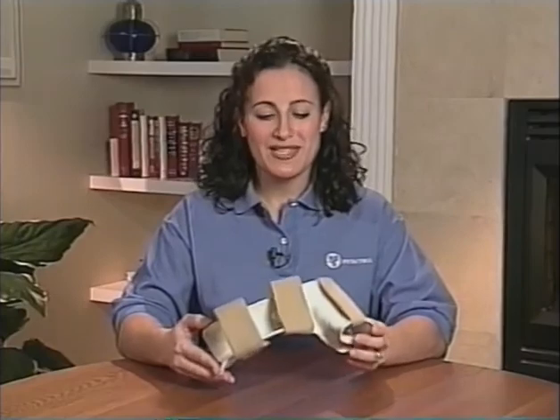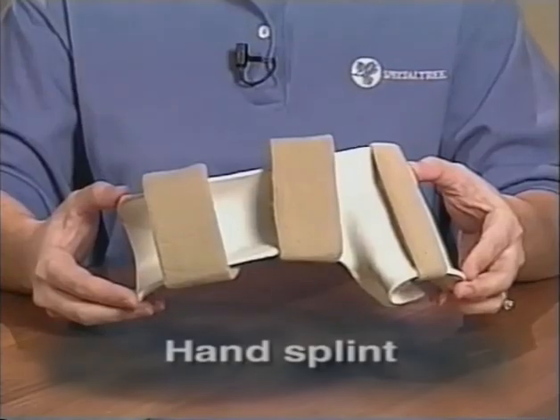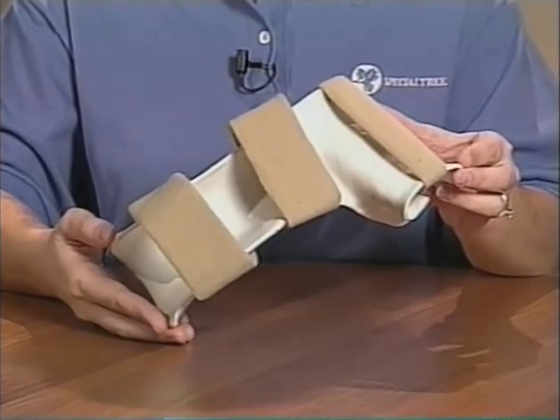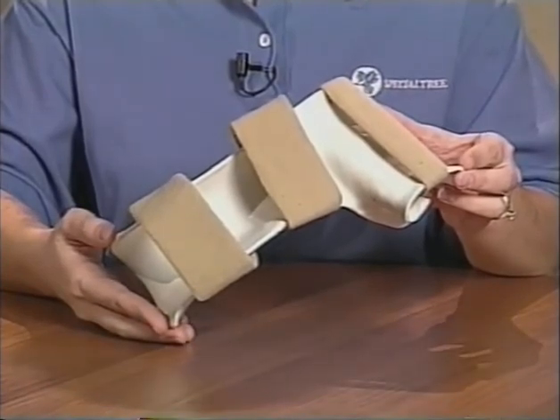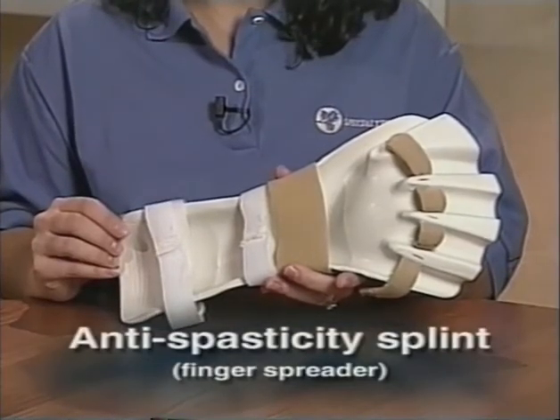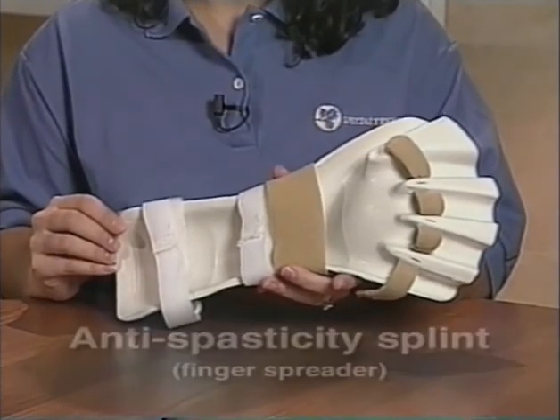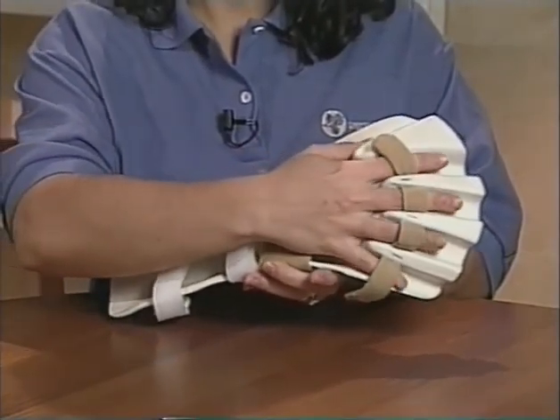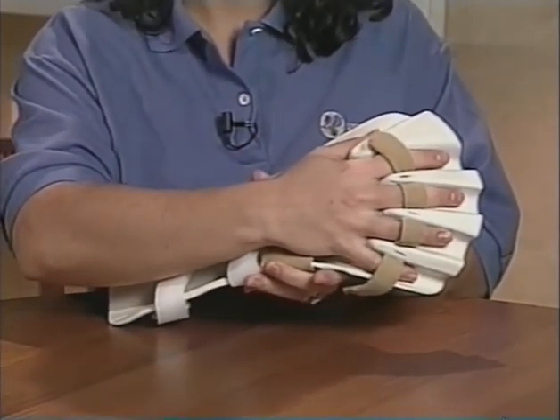Let's take a look at some examples. This is a hand splint made out of thermoplastics. This is used to keep the wrist and hand in a resting or functional position. This is an anti-spasticity or finger spreader splint. This splint is based off the theory that keeping the fingers in a spread position will reduce tone throughout that extremity.